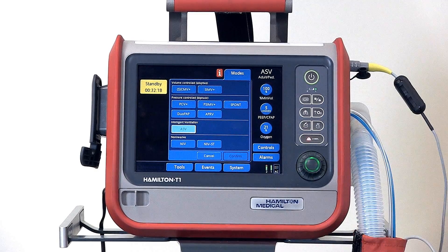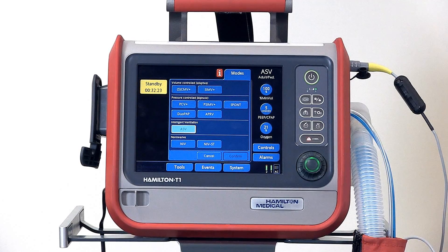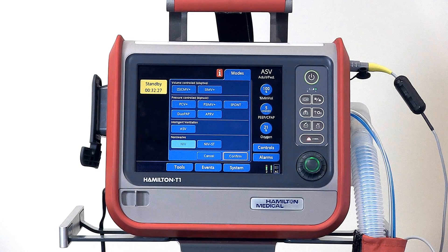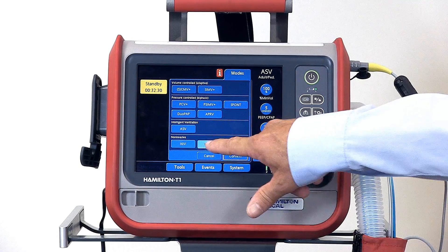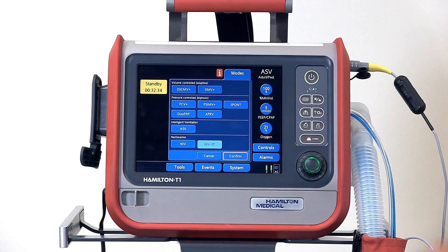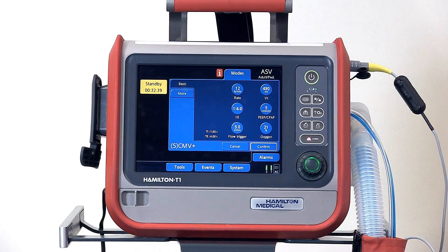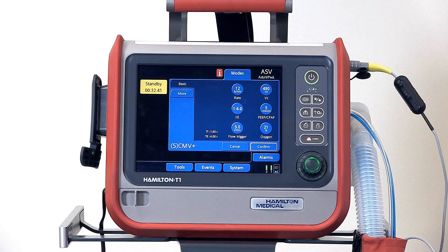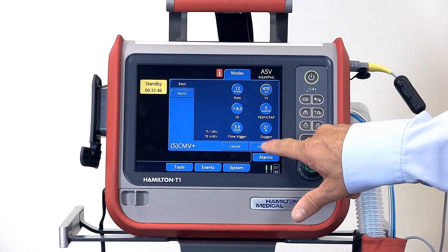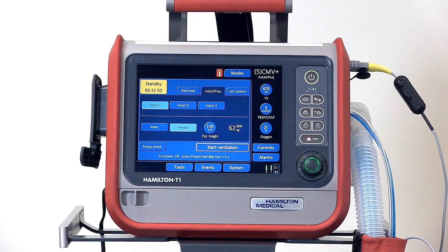Next we have ASV mode, which is adaptive support ventilation. In the bottom section are the non-invasive modes: NIV or non-invasive ventilation, and non-invasive spontaneous timed ventilation. Select your mode, select confirm. This opens the controls window where you're allowed to put in the settings for each mode. Confirm the modes and settings, and you can see we've now changed modes.